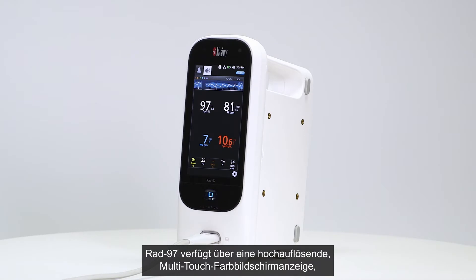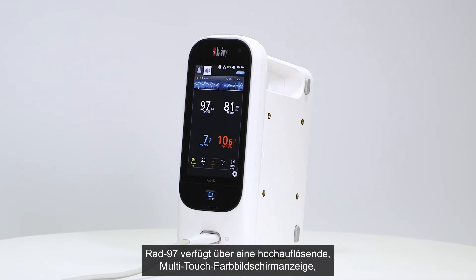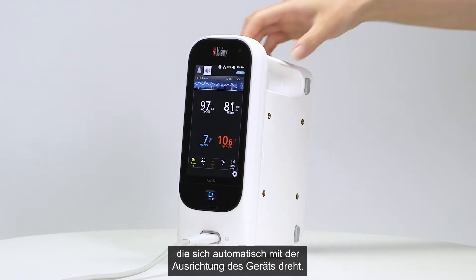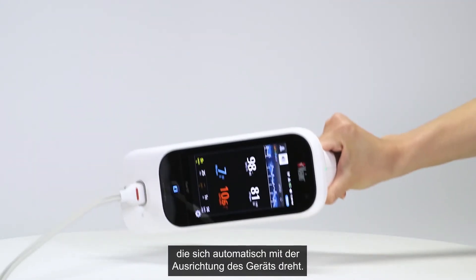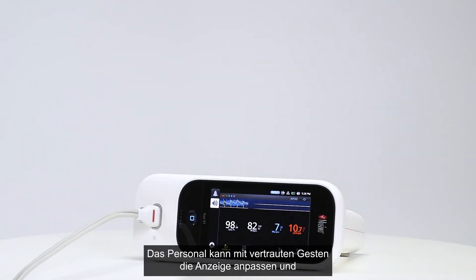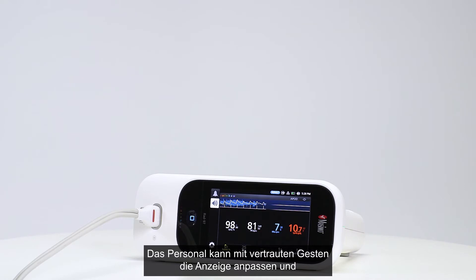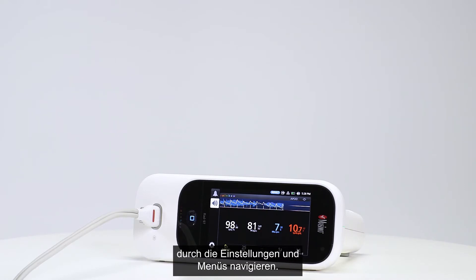RAD97 features a high-resolution color multi-touch screen display that automatically rotates based on device orientation. Using familiar gestures, clinicians can customize the display and navigate through settings and menus.